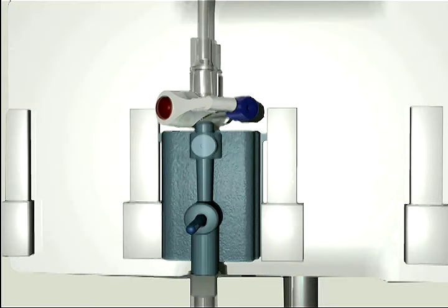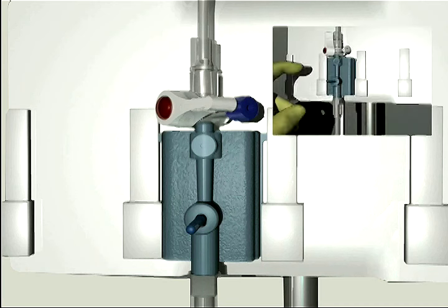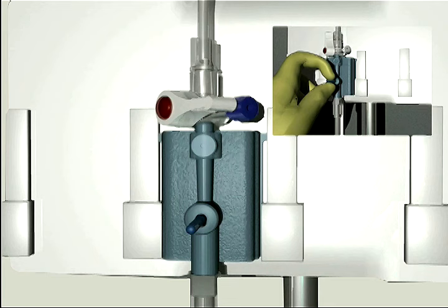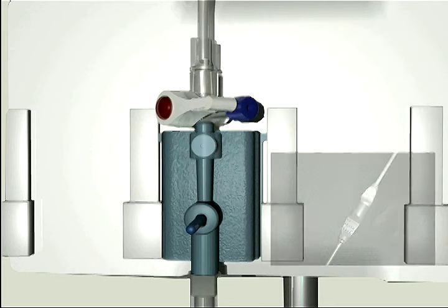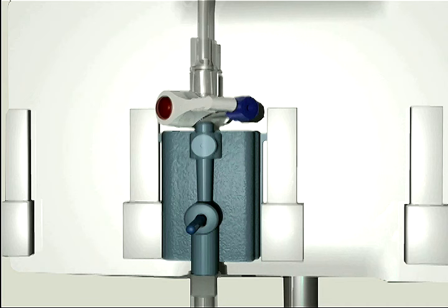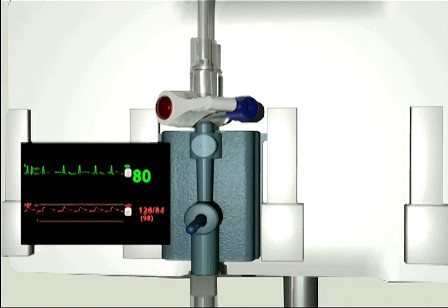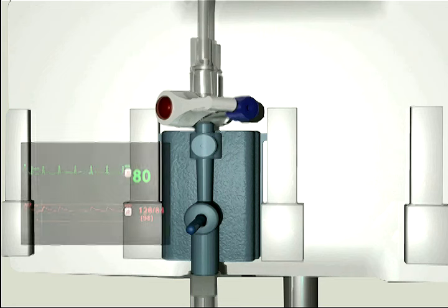The TruWave disposable pressure transducer is designed with the clinician in mind, from its ergonomic profile that fits in the palm of your hand to its cable connector that attaches and disconnects easily. The TruWave disposable pressure transducer provides high waveform accuracy and product reliability through a host of advanced design features.